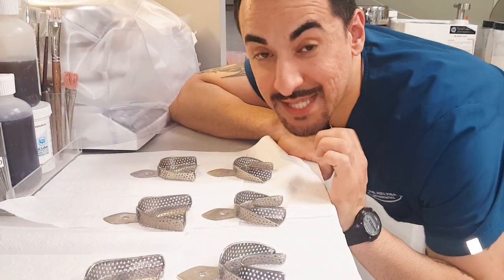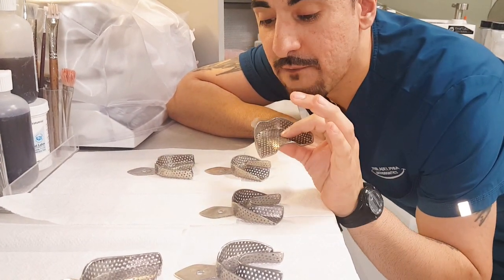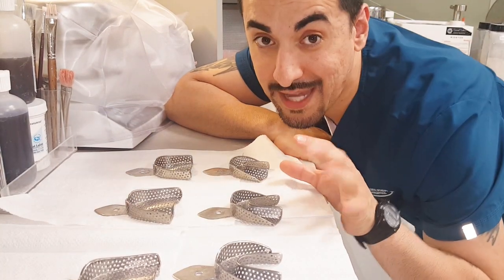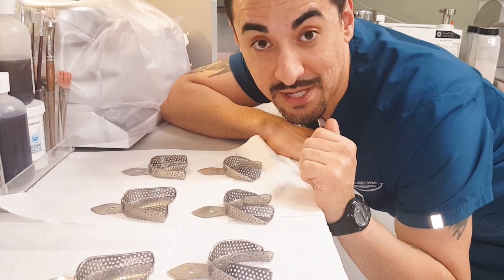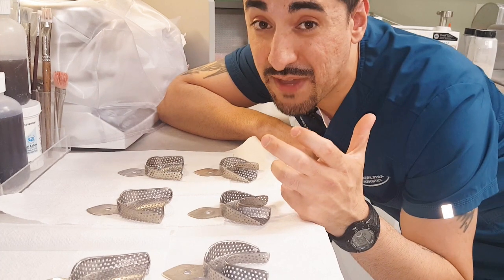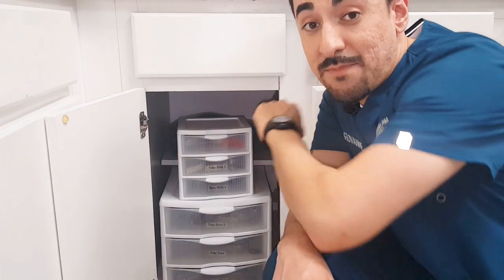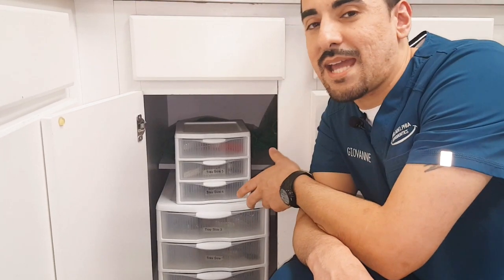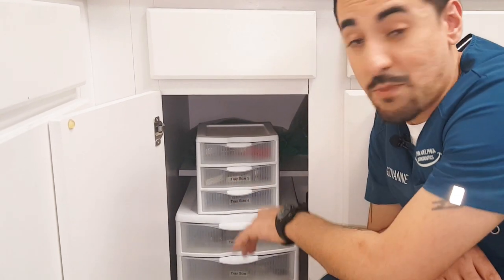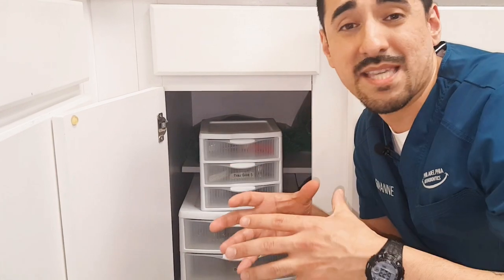What we have here is three different sizes of perforated trays. The most common trays we use in my office are number twos. I'm sure you use your own trays — find the tray you use most in your office, then start with that tray first. If it doesn't fit, whether it's too big or too small, adjust the size accordingly. We keep our trays organized in plastic bins. Maybe number them from smallest to biggest — it keeps the trays nice and organized instead of having them all together in one location.